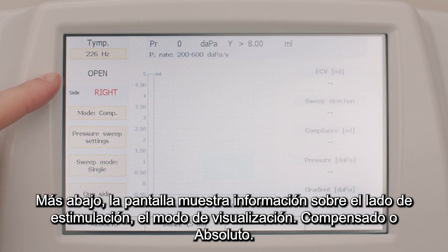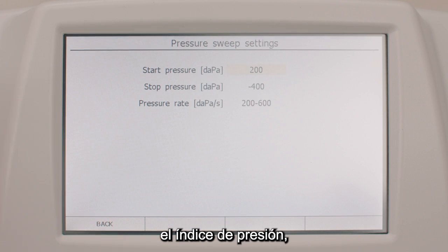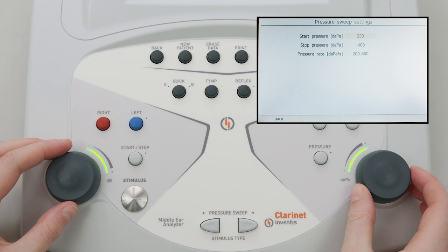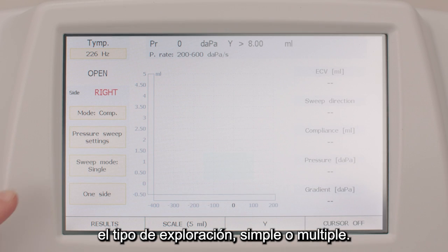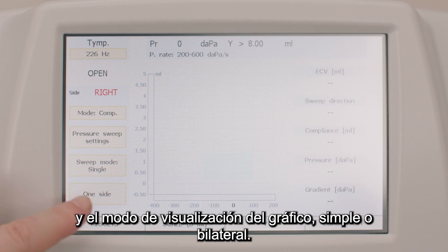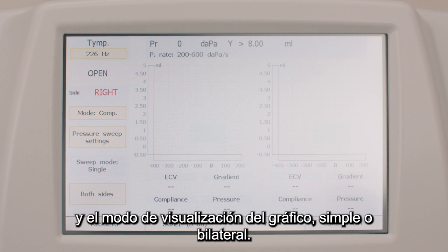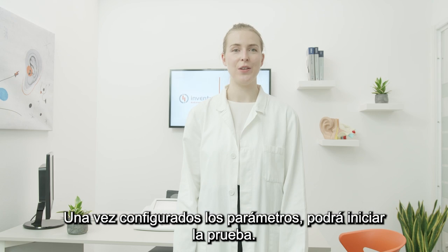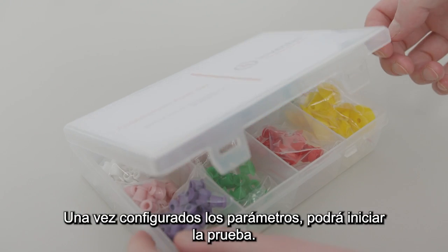Lower down, the screen shows information about the stimulated side, the visualization mode, compensated or absolute, the pressure sweep rate, the type of scan, single or multiple, and the graph display mode, single or bilateral. After having set all the parameters, you'll be able to start the examination.